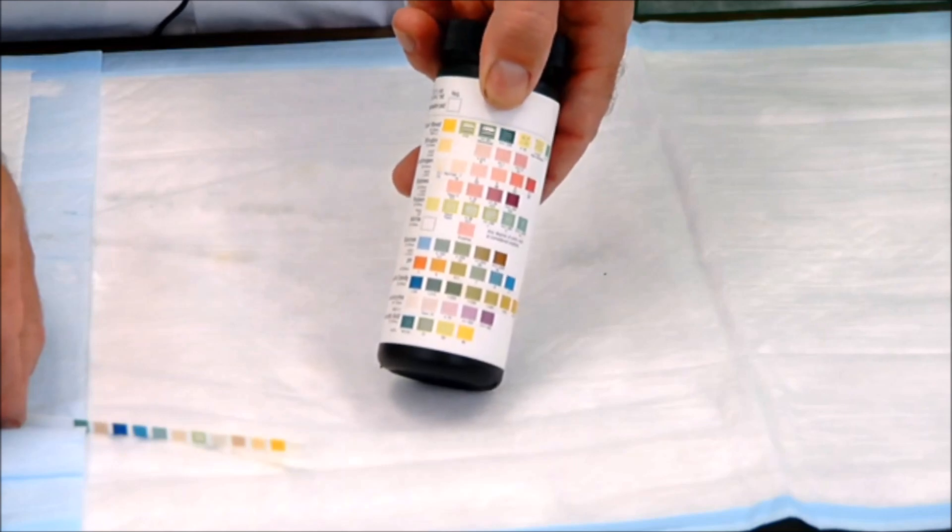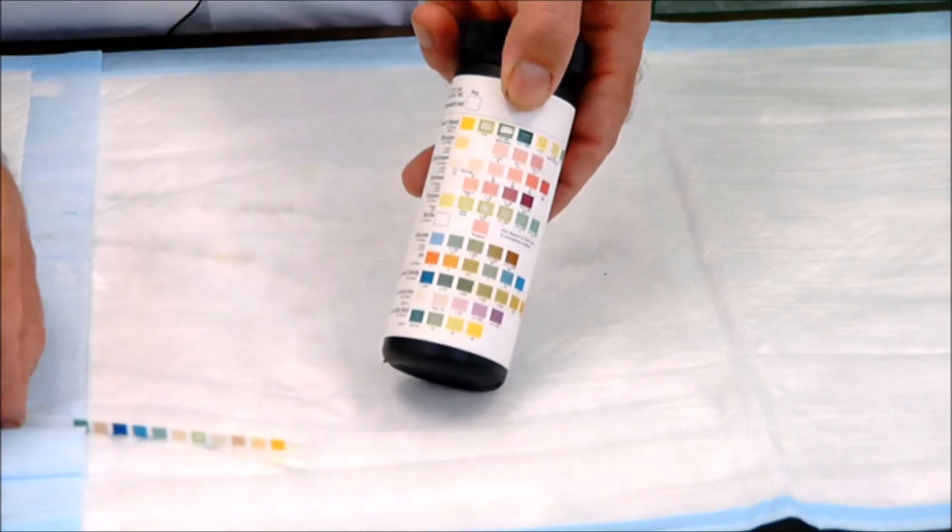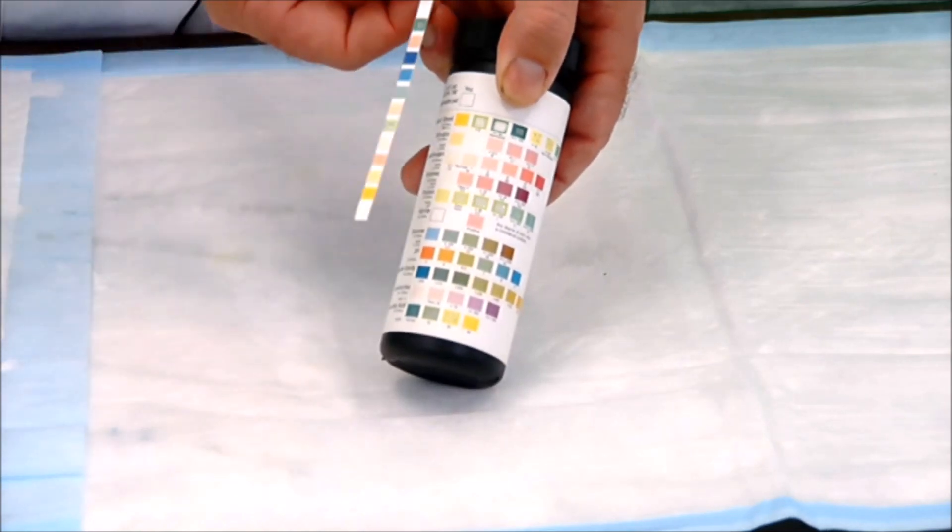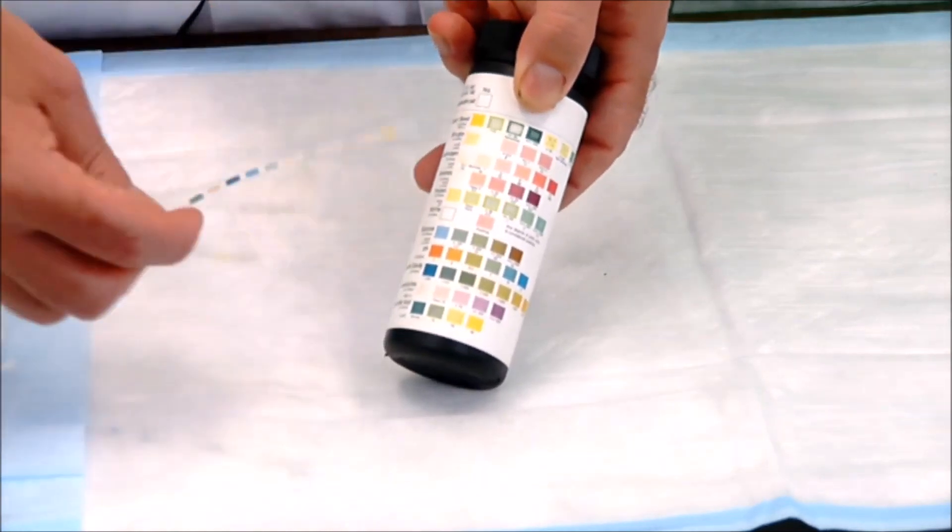Now, I realize this color chart has to be read within one to two minutes. Otherwise, the values are no longer applicable. So let's compare to the color chart here.